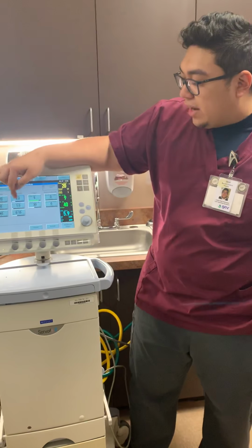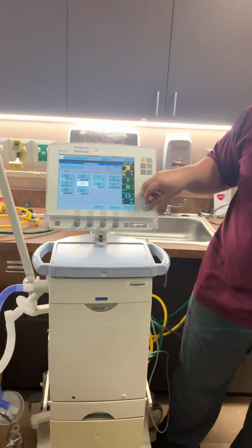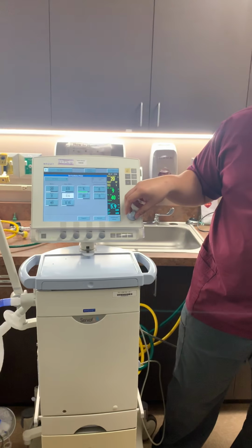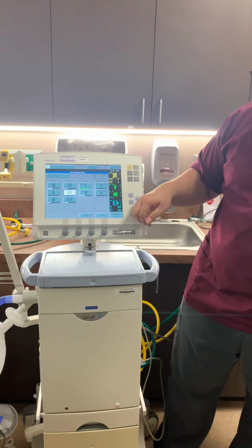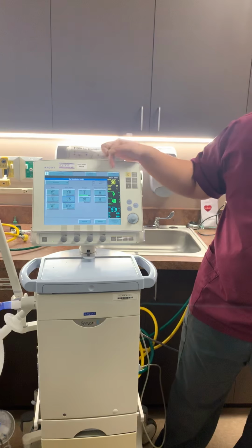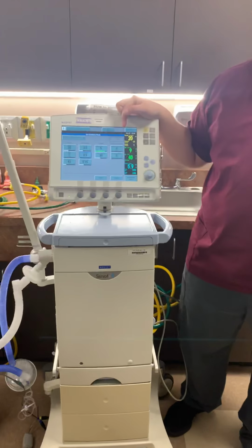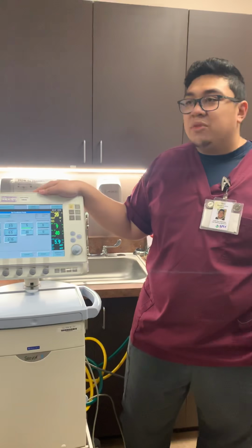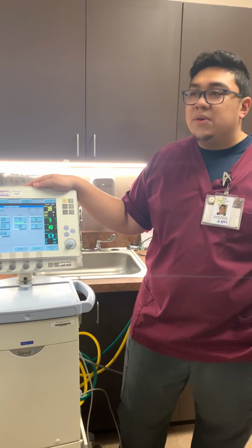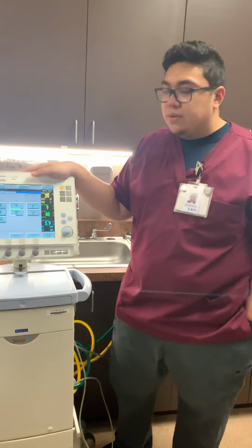And if I change my time at PEEP, or T-PEEP, or T-low, those are all the same thing, and this will also adjust the I:E. Makes sense? Get your hands on with this. It's pretty easy to use, and if you have any questions about it, let us know.